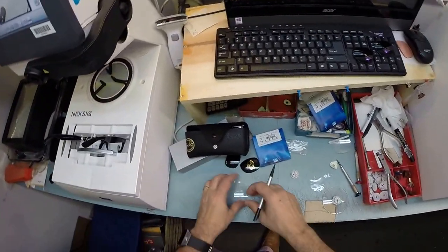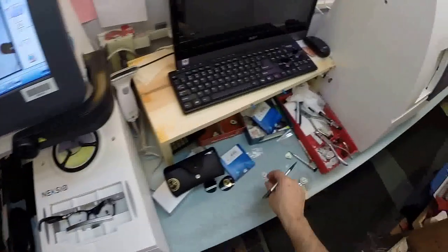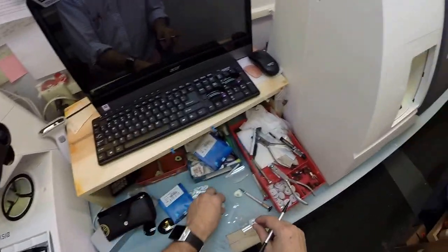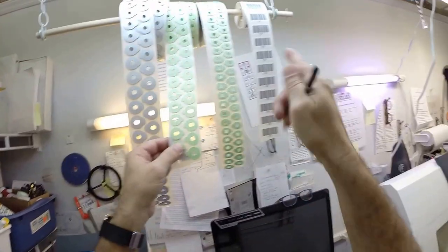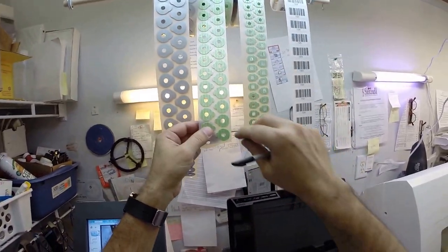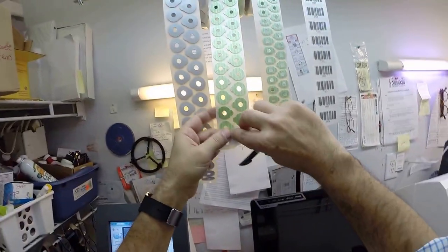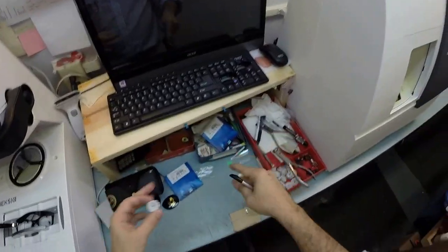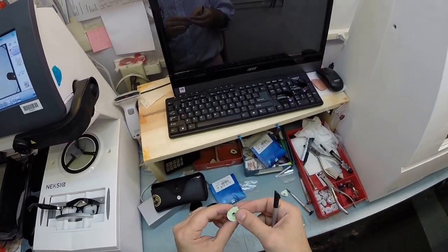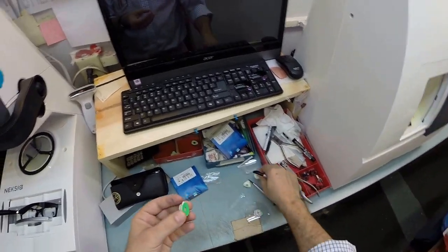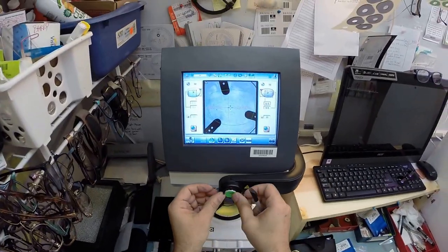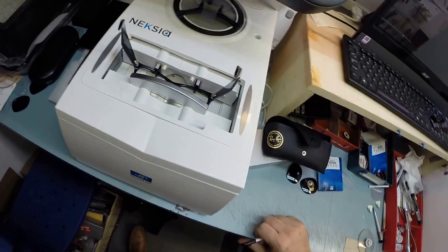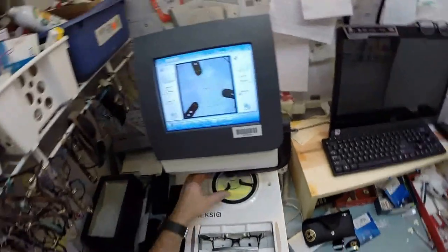Let's do the same thing now for the left lens. Of course this could be the right or the left. It does not matter since these are non-prescription. Let me actually go ahead and pull one of these off. This is new. You haven't seen this in my video. I used to keep all the stuff down here. Now I've got it hanging overhead and gives me more counter space to make a mess. Pull the paper off there, line up the magnet, hit the button, and now the block is going to be placed onto the left lens.